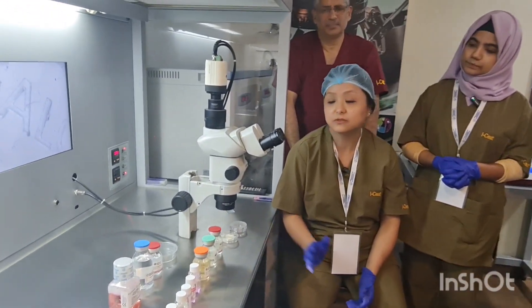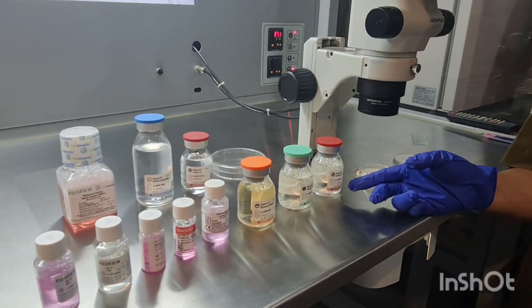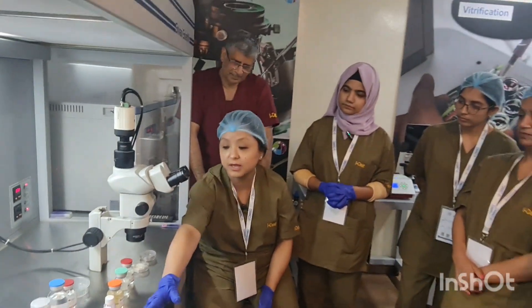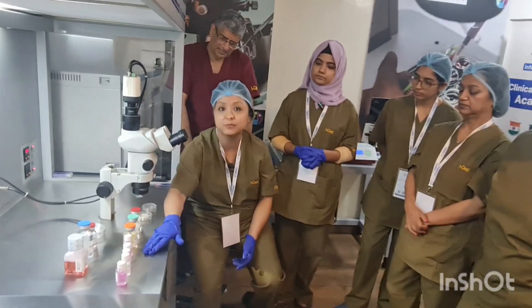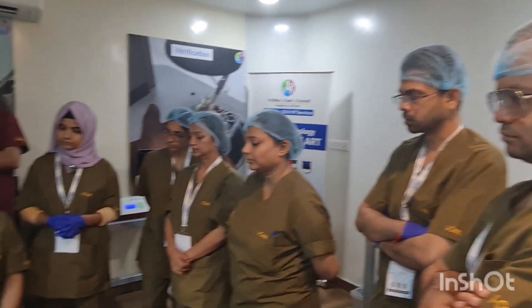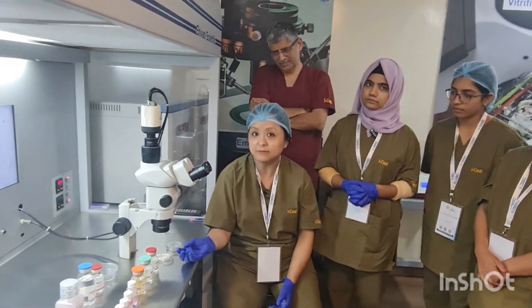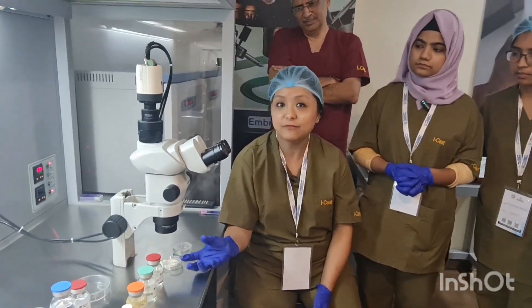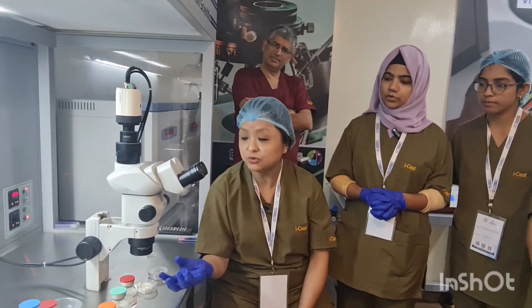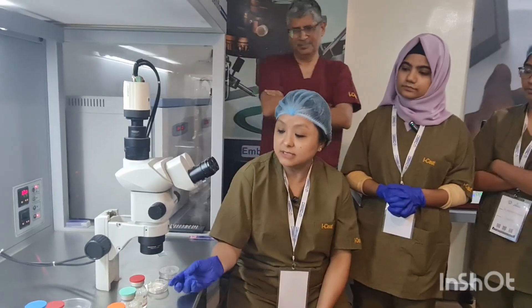We have two types of culture media: sequential culture media — that is fertilization media, cleavage media, and blastocyst media — and another is single step media. Before the day of procedure, on day minus one, we have to charge the media inside the CO2 incubator.